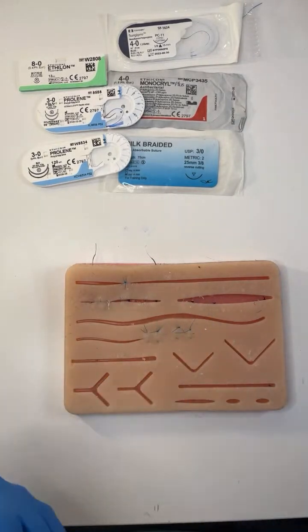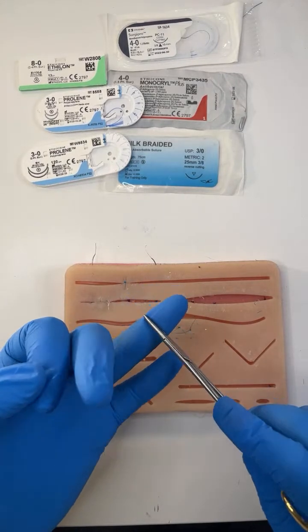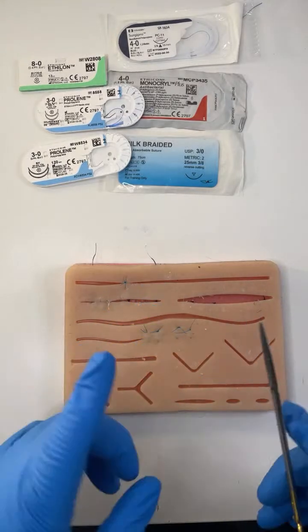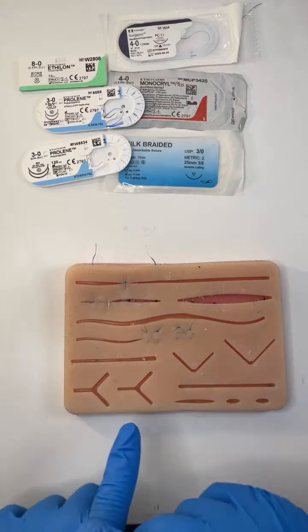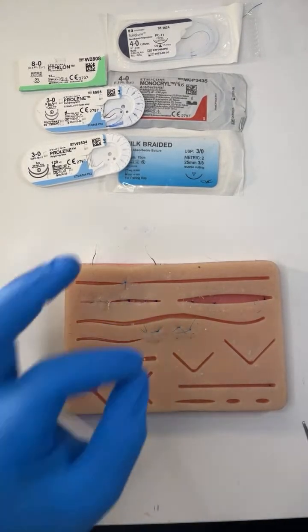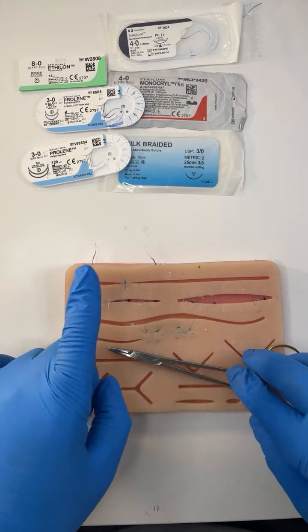Sometimes suturing is just hard — because of the patient, because of the wound, because of the environment you're suturing in, or you're just not having a great day. So I'm going to take you through some techniques in the members-only area on how to deal with that. But in this live session beforehand, I'm going to talk to you about suture classification.